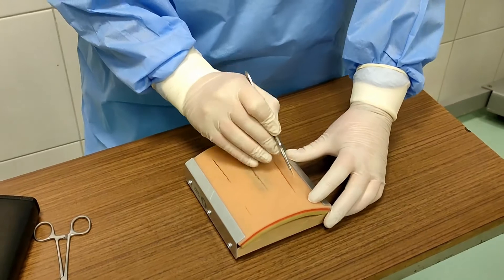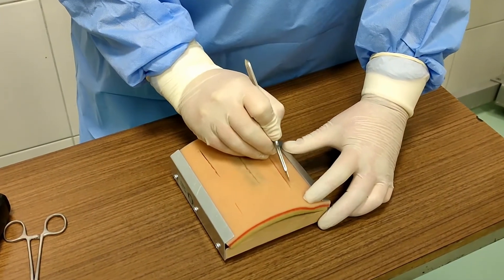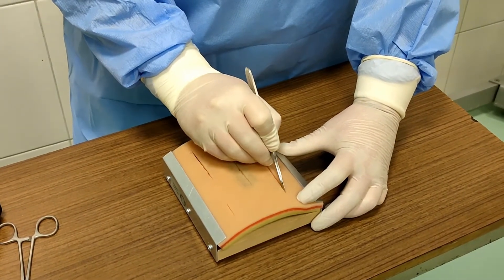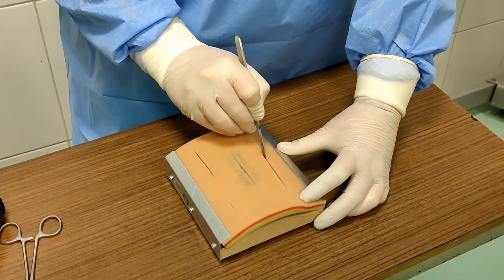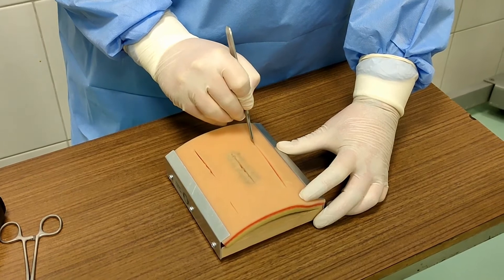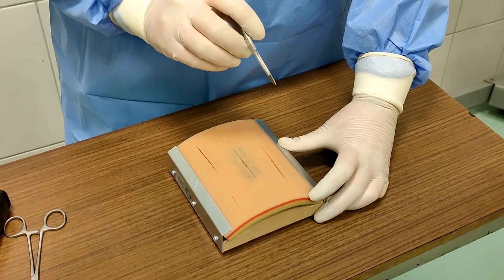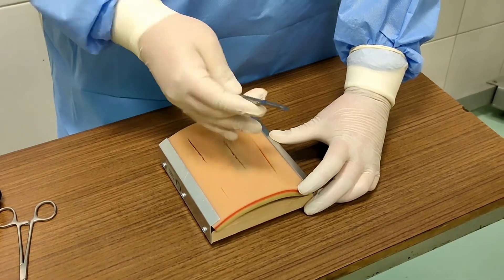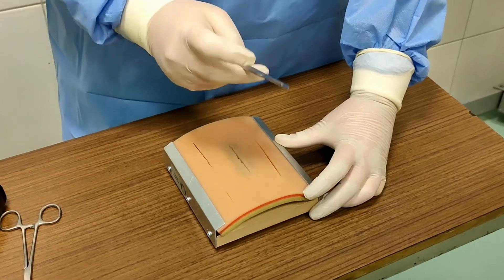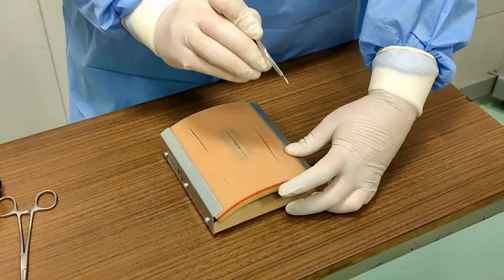The first method is called the pencil grip — it is similar to holding a pencil. Another way of holding the scalpel handle is using the tips of your fingers, including your thumb.